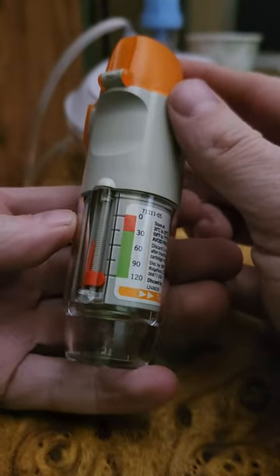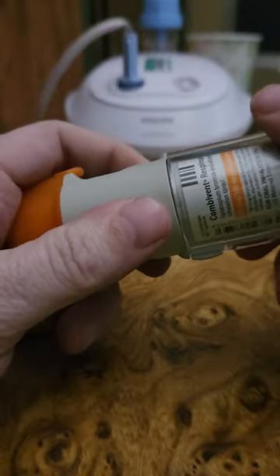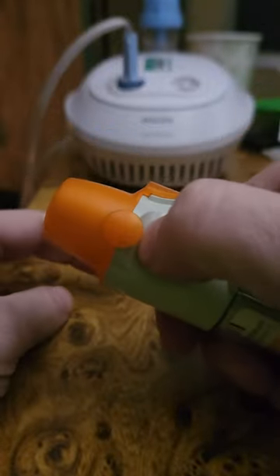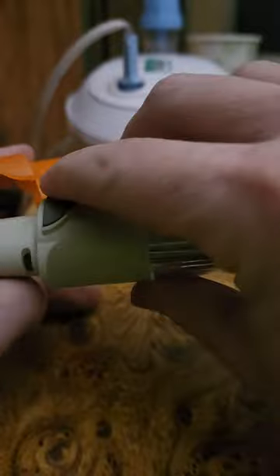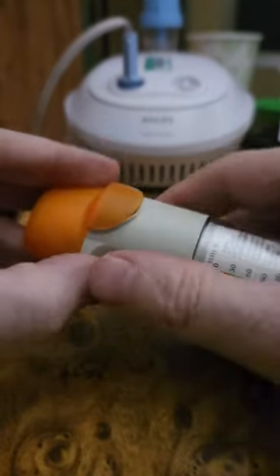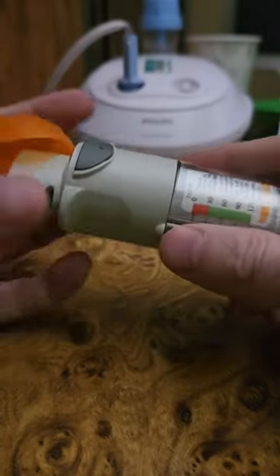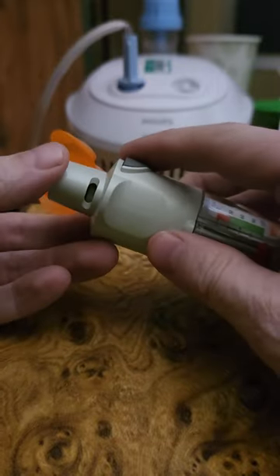This is your meter that will tell you how many you have left. You twist it like this and now it's ready to go. Then you turn it like this — you could just pop the cap right there.